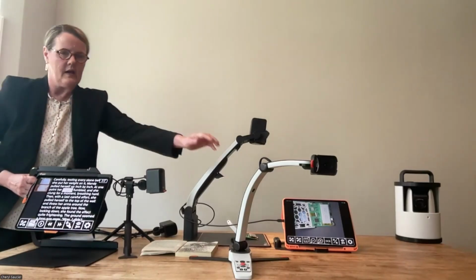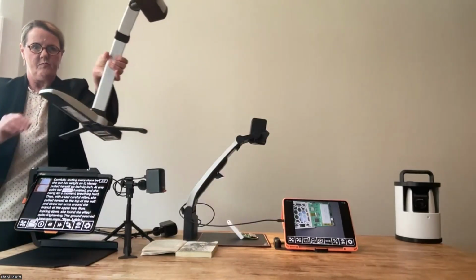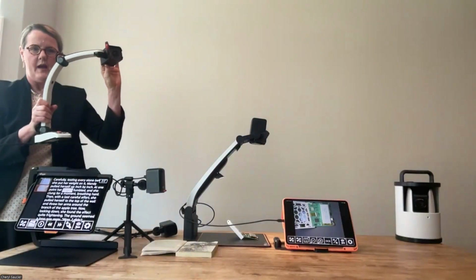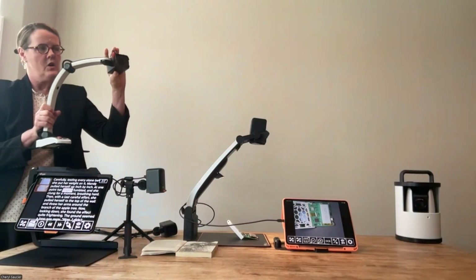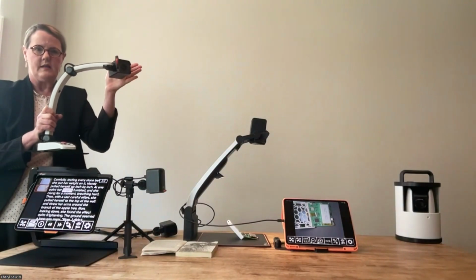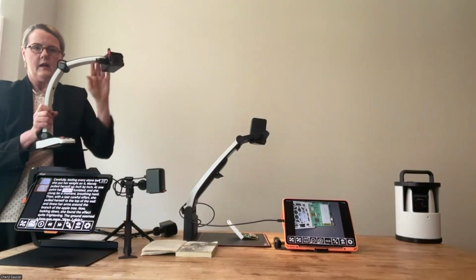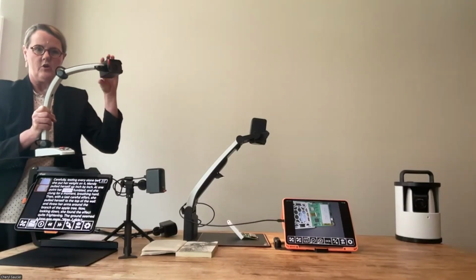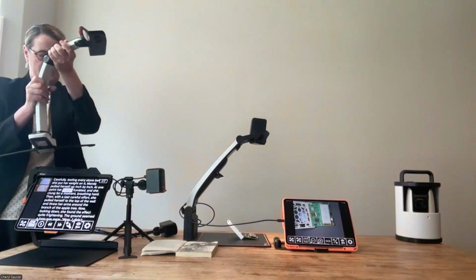So the Magnilink S product is here. This is the one that I think people historically have been most familiar with. This is the one that is about 4 pounds, and you can use it with multiple platforms. What we're seeing now is schools who may have used the Magnilink S in the past with Chrome Viewer or with our Chromebooks. Now, if their students have iPads, they already have these ready to go, and they're using them with our Magnilink Viewer software. So this is the Magnilink S.